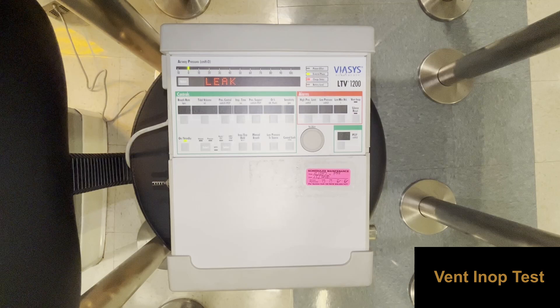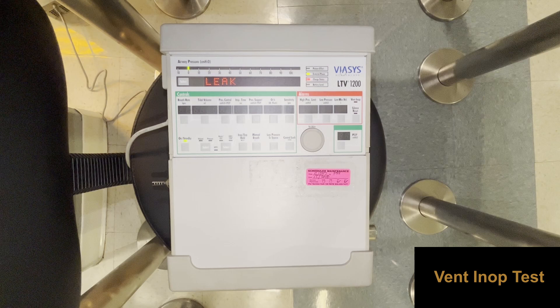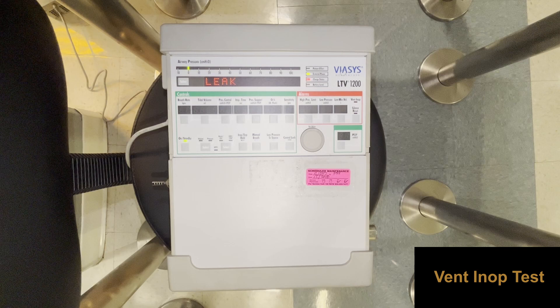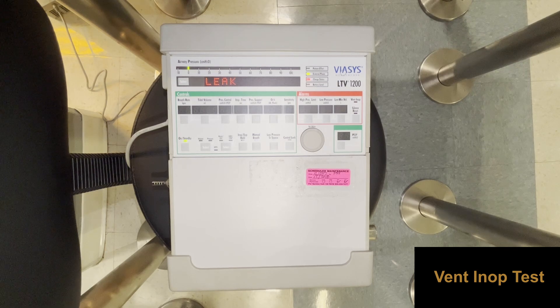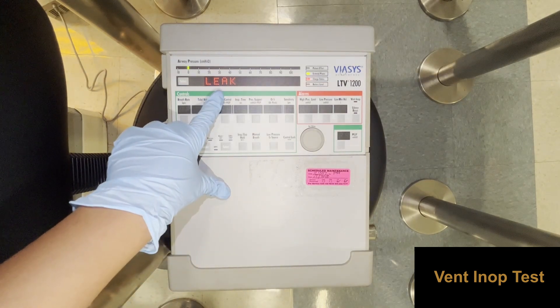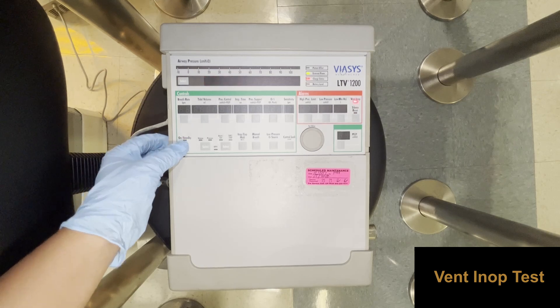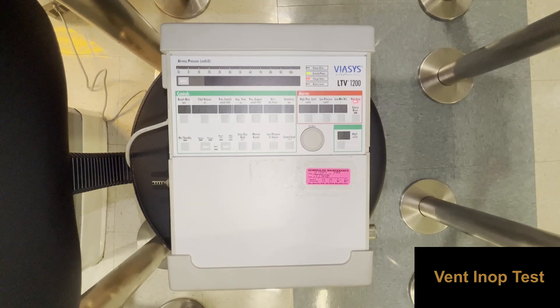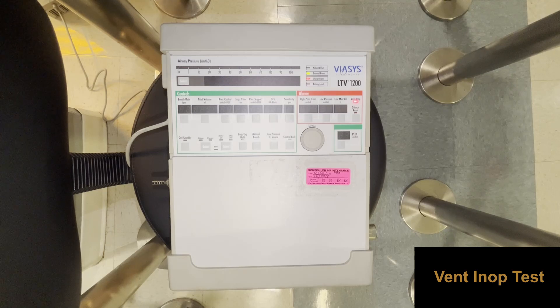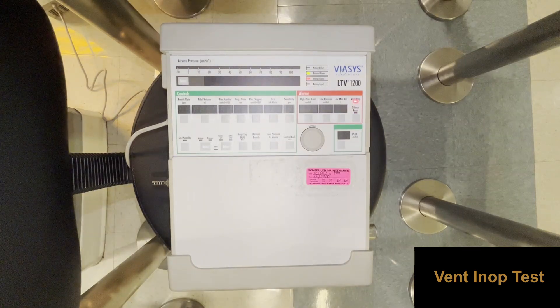The vent inoperative alarm test verifies that the ventilator can detect and alert you when the device is turned off or unplugged. To perform this test, the ventilator must be on and running for at least 60 seconds, and the ventilator checkout menu must be enabled — you will know it is enabled if vent check, alarm, display, control, leak, or exit is displayed. Turn the ventilator off by pressing and holding the on/standby button for at least three seconds, making sure not to press the silent/reset button. Observe the ventilator for 15 seconds. The test passes if the alarm tone sounds continuously and the vent inop LED illuminates for the entire 15 second period.